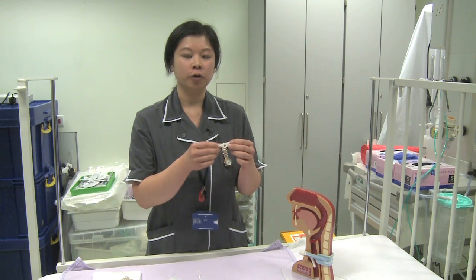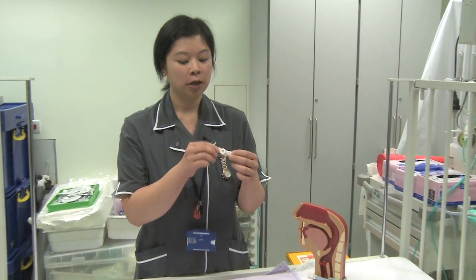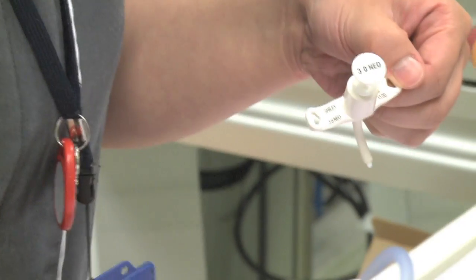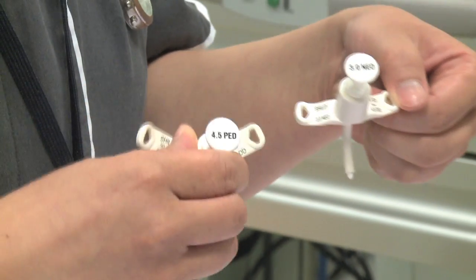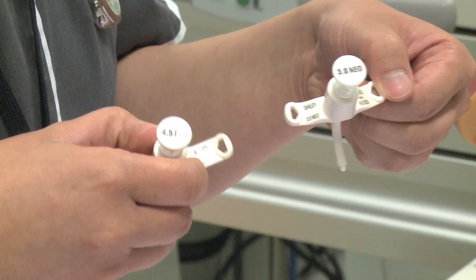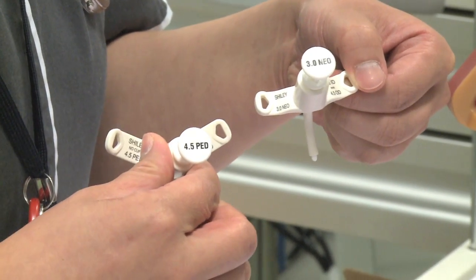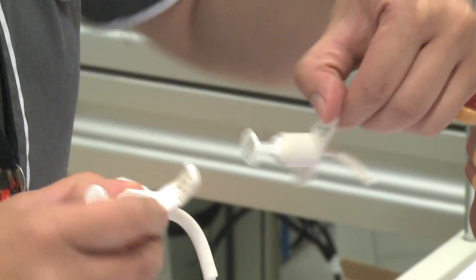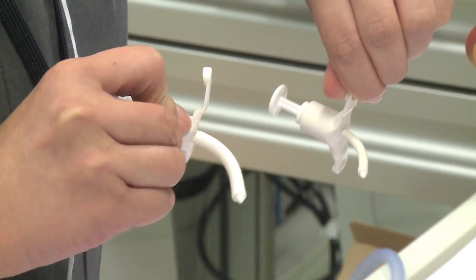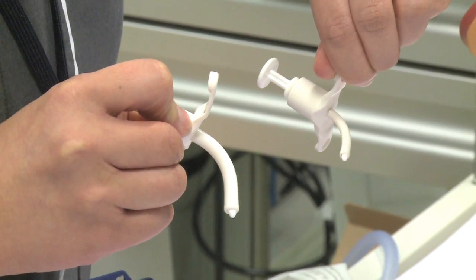This is a tracheostomy tube commonly used in our trust, and they come in two different sizes: the neonatal and the paediatric. As you can see, the wings are different — on the neonatal they're much straighter, and the paediatric is much more V-shaped. The difference between the two in terms of length is also that the neonatal is much shorter than the paediatric.